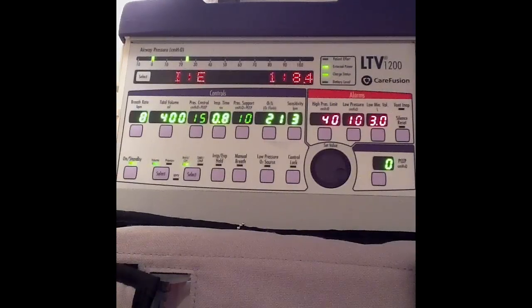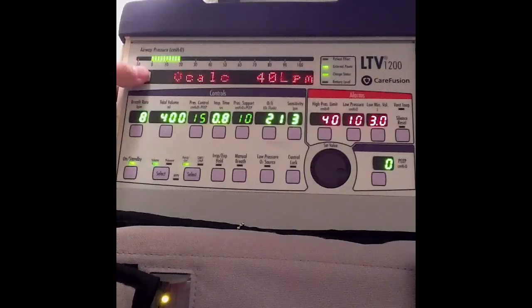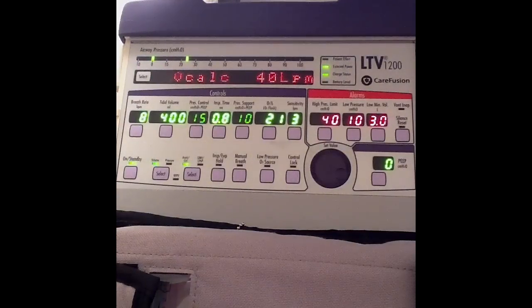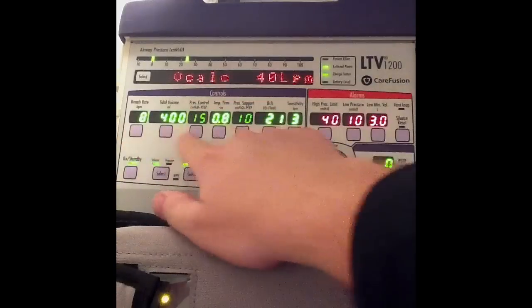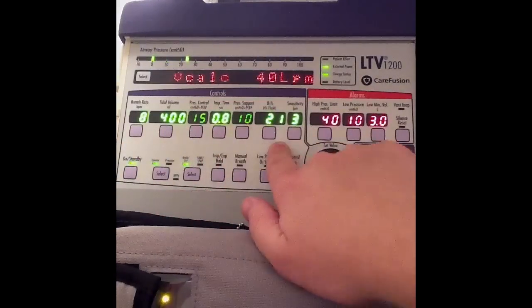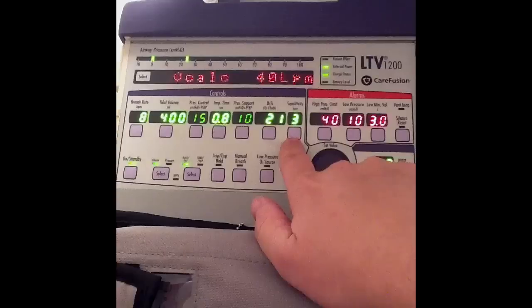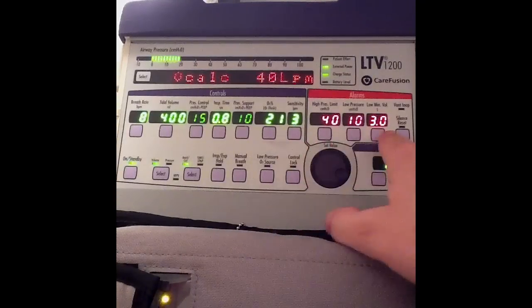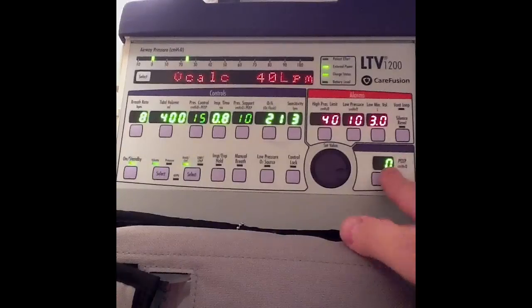We are now set up for ventilation in an adult patient. Current settings are a breath rate of 8, tidal volume of 400, inspiratory time of 0.8, FiO2 21% because I'm using room air, and a sensitivity of 3 liters per minute. Alarms are set and I have zero PEEP currently.